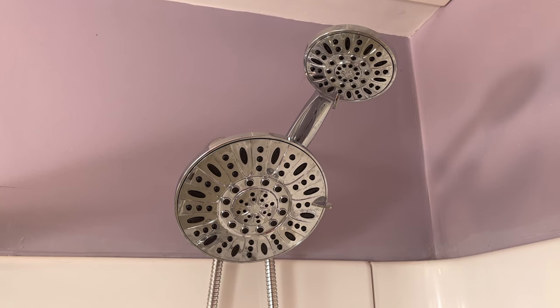My daughter prefers taking showers over baths. If you were doing a bath situation, you may not need this, but the seat is really a good idea, especially early on when she was using the soft splint cast that they gave her in the emergency room — that was a very different experience than the hard cast. It's far less protective, so we really wanted to prevent falls, especially on that slippery shower floor. We also used a handheld shower head, and I think this was so important because it allowed us to guide the water away from the cast.